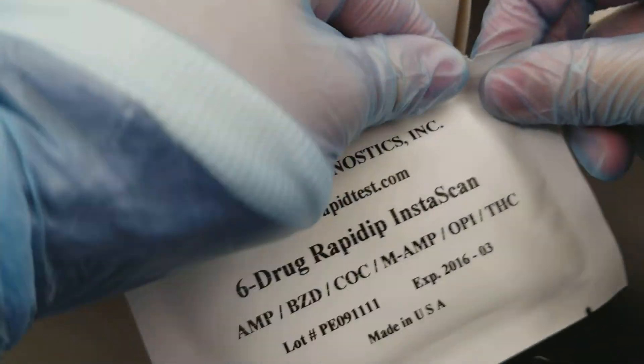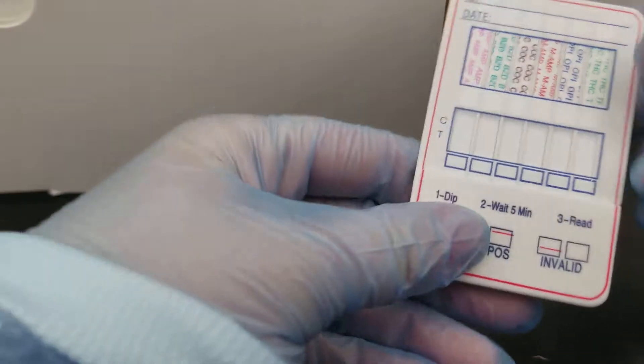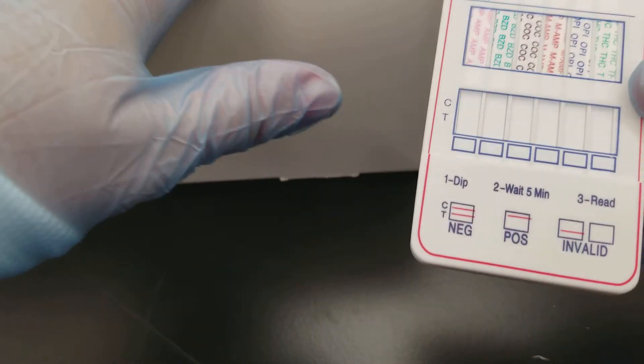We're going to bring it to room temperature. It should be stored at room temperature. It can be refrigerated, but ours is room temperature.